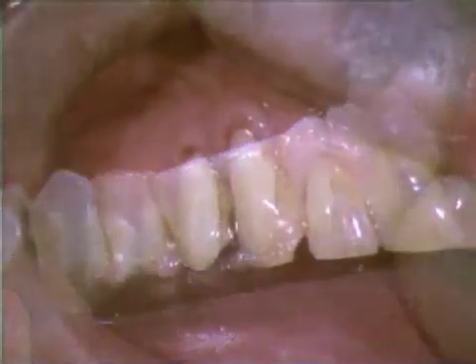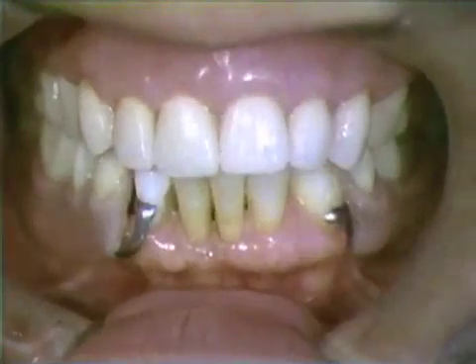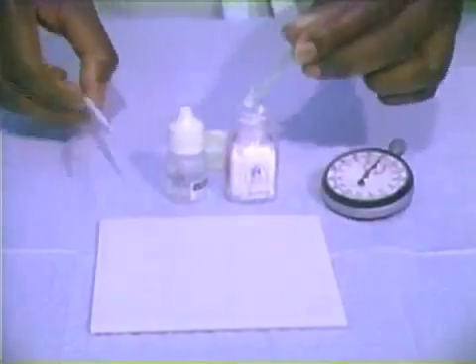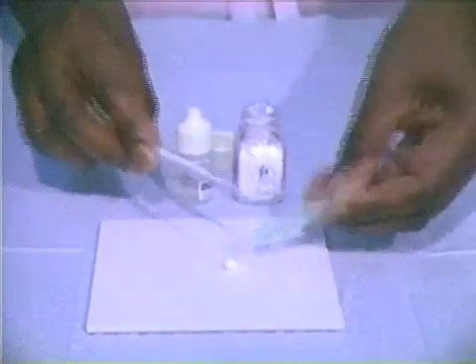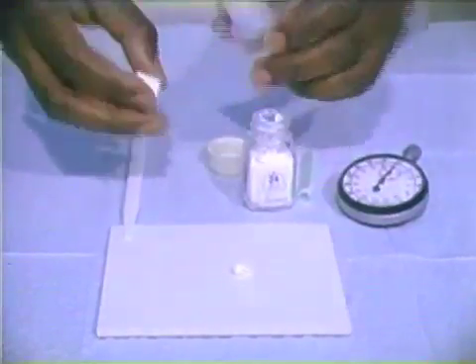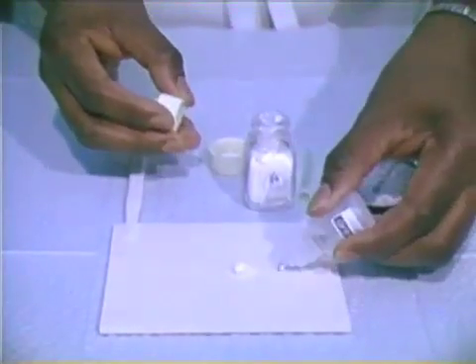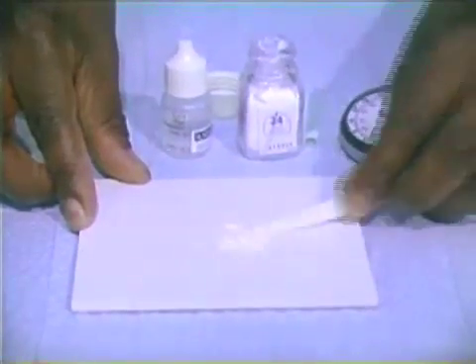Glass ionomer materials offer some non-traditional restorative options, since they are chemically adhesive to dentin and cementum. The glass ionomers are marketed in two forms: one with a lower viscosity for luting or cementing purposes, and one in somewhat higher viscosities for restorative purposes. Those designed for cementation are classified as type 1 cements, and those to be used as restoratives are type 2 materials.